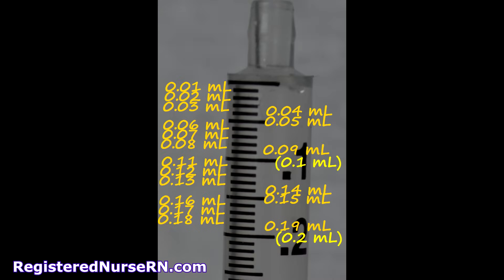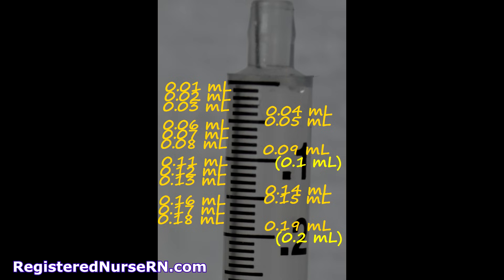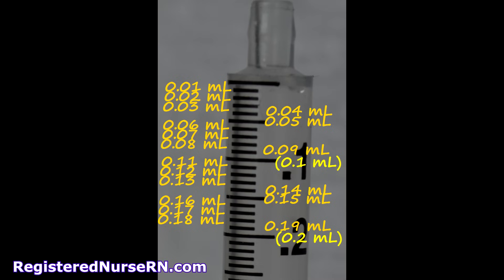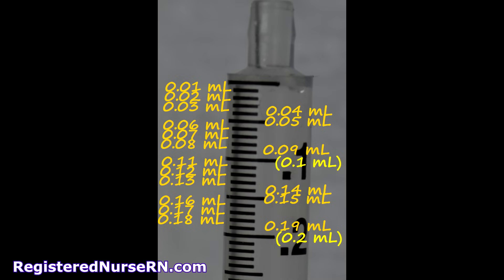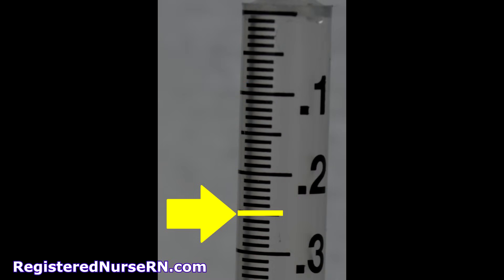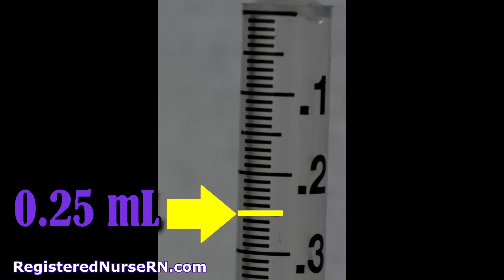Our next syringe is the 1 mL syringe. If you don't have good eyesight, you really have to squint to see the little lines, but it's great for giving medications where you have to give just a little bit, like 0.25 mLs. The top line is 0, and this syringe measures down by 0.01: so 0.01, 0.02, 0.03, onward until you hit 0.1 mLs, and then continuing to a total capacity of 1 mL. Based on the yellow line, the answer is 0.25 mLs.